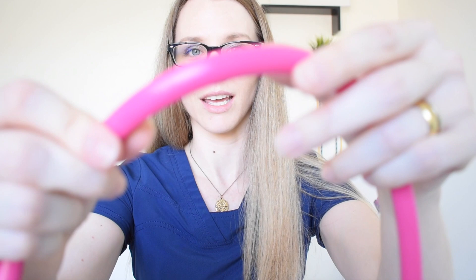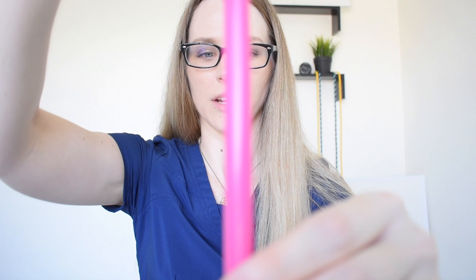I hadn't gotten new scrubs recently so I couldn't test dye transfer from those, but I did wrap the stethoscope in a magazine in my work bag and really tried to get color to transfer onto the tubing. Even with all of that, nothing transferred over. That's really important because it's frustrating when you pay good money for a stethoscope and then feel uncomfortable using it because it's stained. I put this through the wringer and had no success getting it to stain, which I'm not upset about.